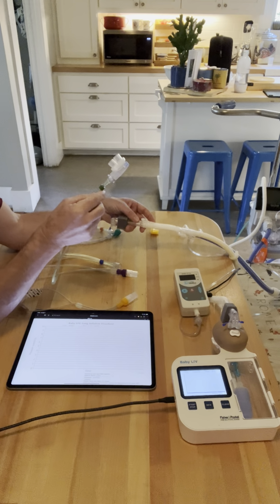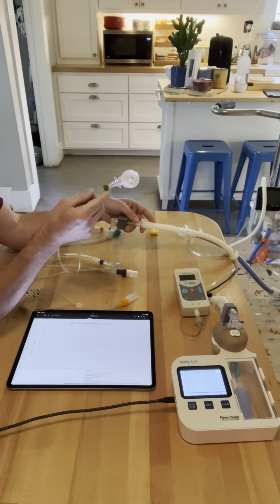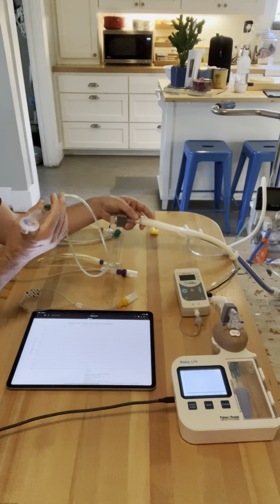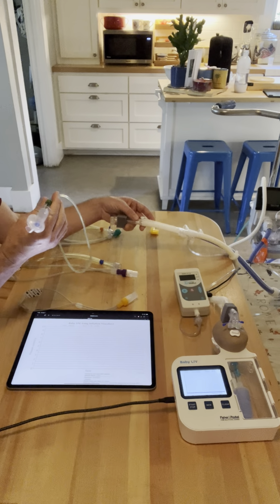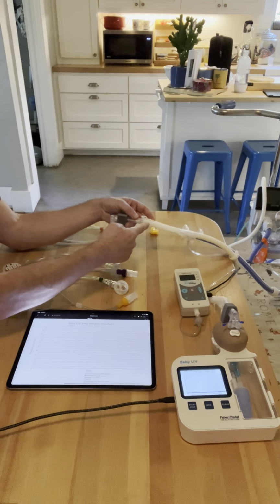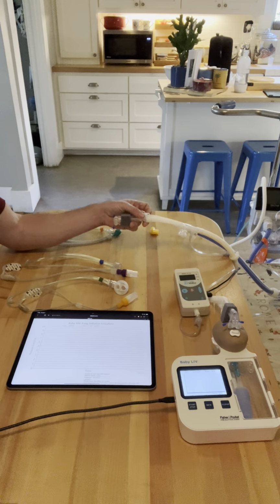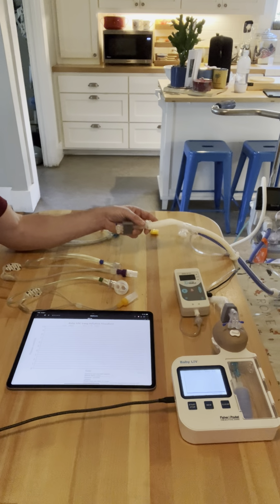Some cannulas will say there's no flow limit. That's just not physically possible. As the tubing gets narrower and narrower, you are going to have a restriction on how much flow you can drive through it. Even this large bore tubing has an upper limit of how much flow you can drive into it. It's not an infinite amount of flow that can be driven. So number one, it has large bore tubing.